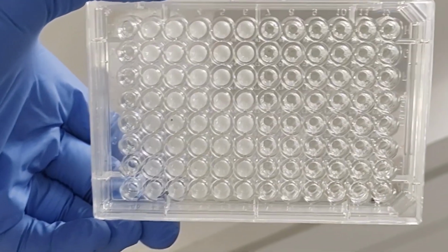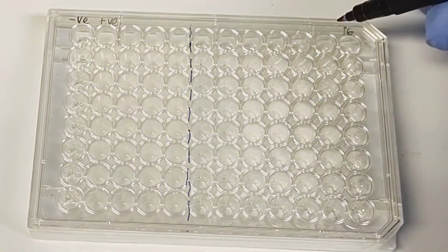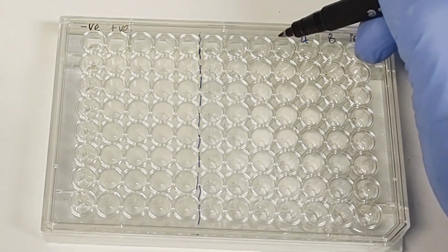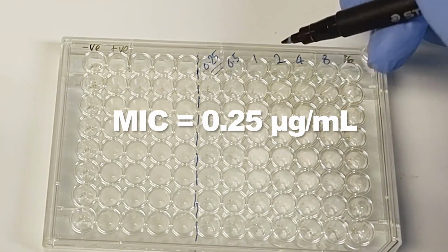We are looking for the column at which the media is completely clear, with no visible growth, the same as the negative control. This will be the concentration which inhibits growth. This is our MIC.